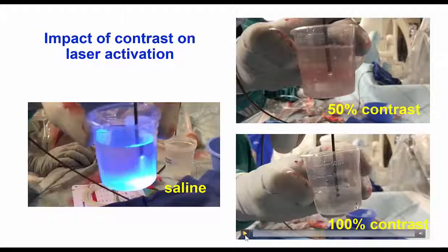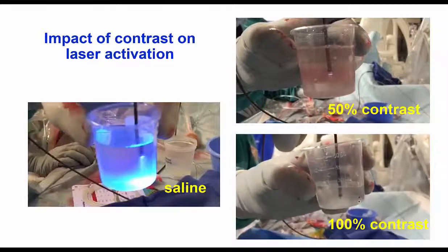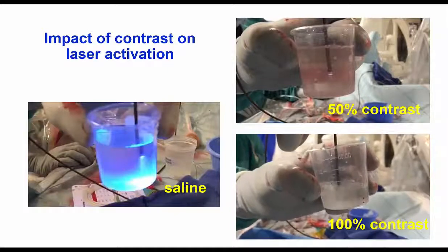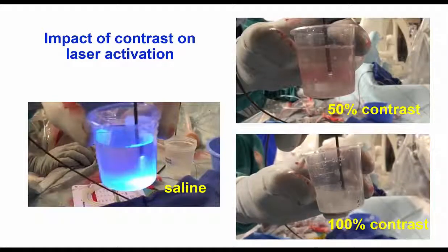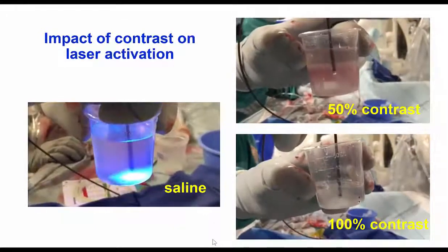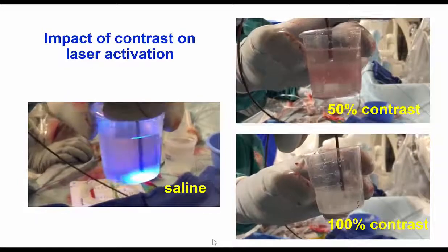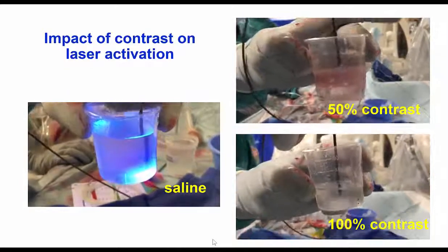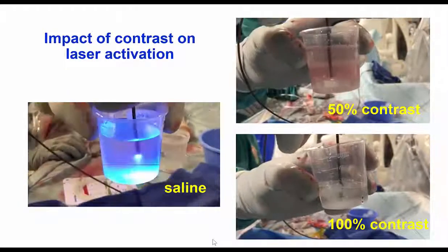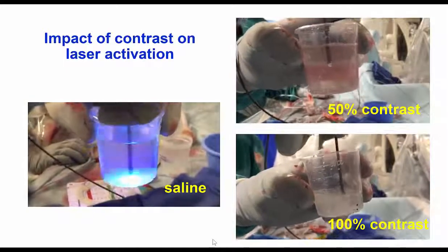And this is what happens once 100% contrast is being used while the laser is activated — there is now a dense formation of bubbles within the medium solution. In summary, activation of laser within saline does not create any bubbles and it's much safer than activation within contrast.